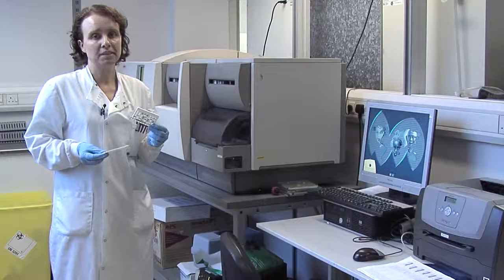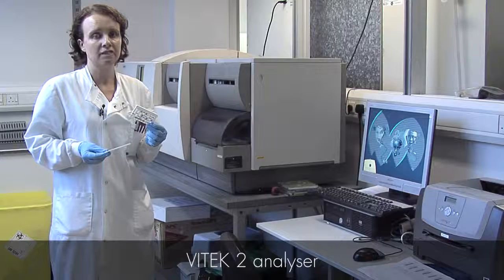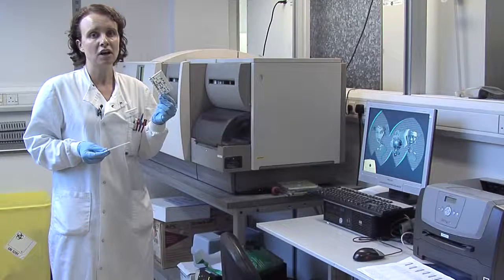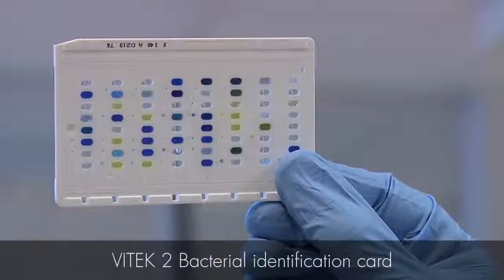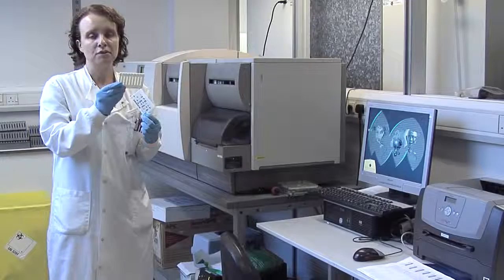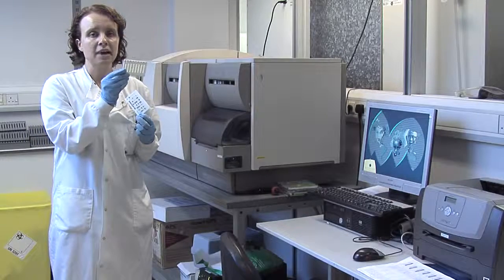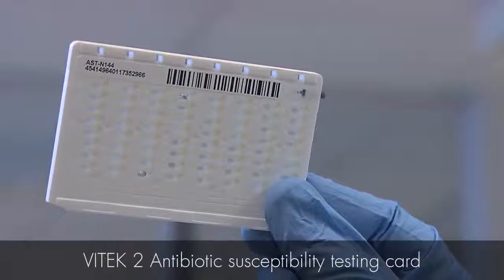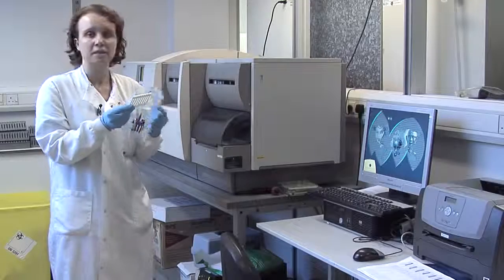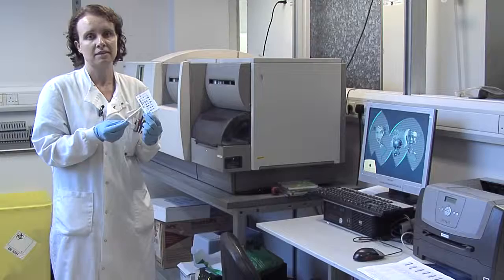Another way of doing susceptibility tests is by using our Vitek 2 analyzer, which is an automated identification and susceptibility testing machine. It uses identification cards to help identify the organism, so it would tell you whether it was an E. coli or a Staphylococcus aureus. And it uses susceptibility cards which have antibiotic in them, and the bacteria will grow in the antibiotic or be inhibited by the antibiotic, and the machine interprets both sets of results by comparing the results to its database.